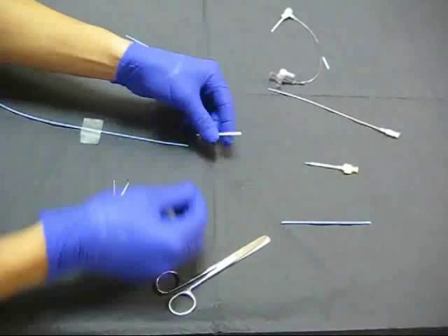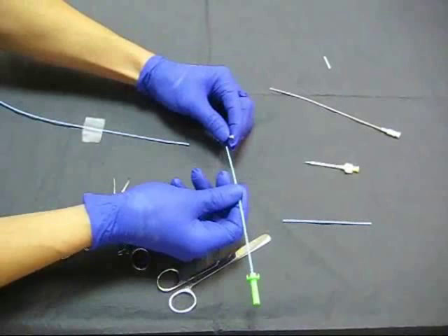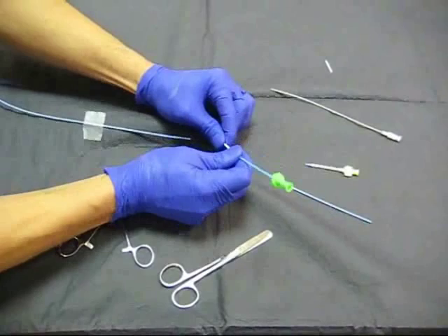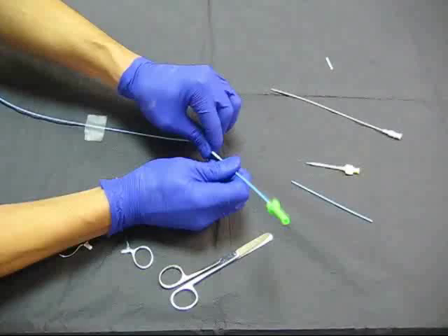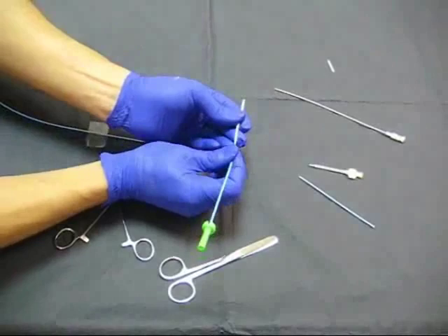Before we do that, we want to flare the sheath using a guiding dilator. This is a six French dilator which is inserted over the sheath, and then we will do the same on the other end of the sheath piece.